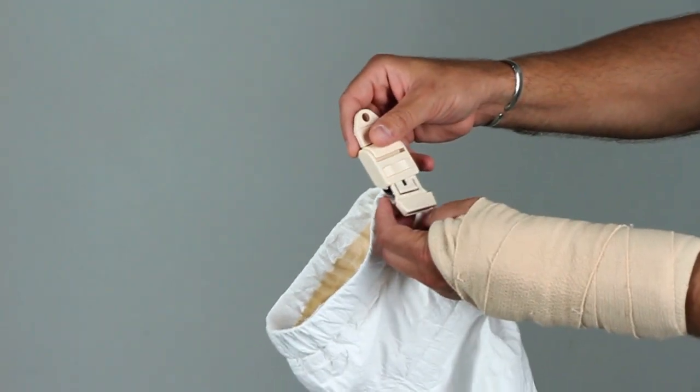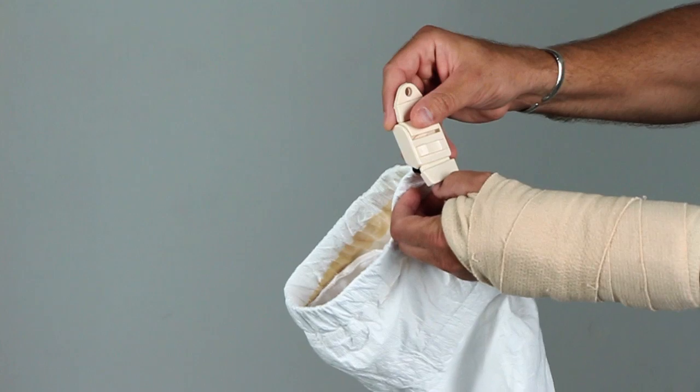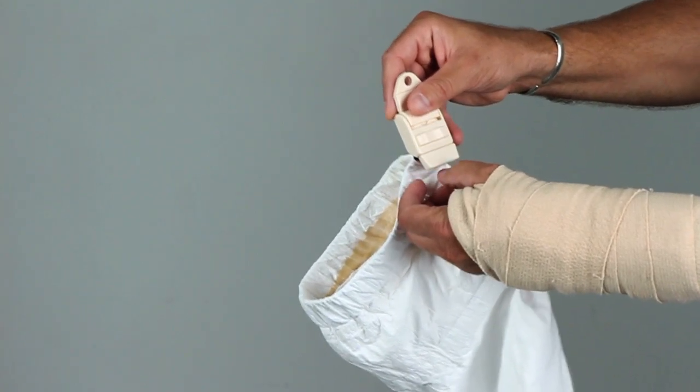Start with the tan plastic clasp. Insert one side into the other until it clicks.